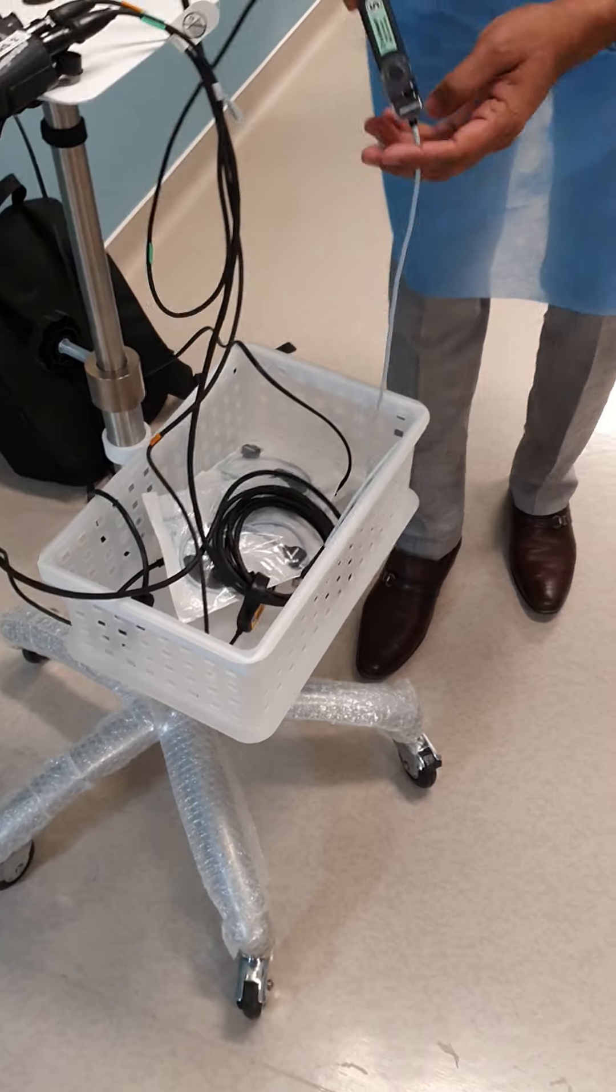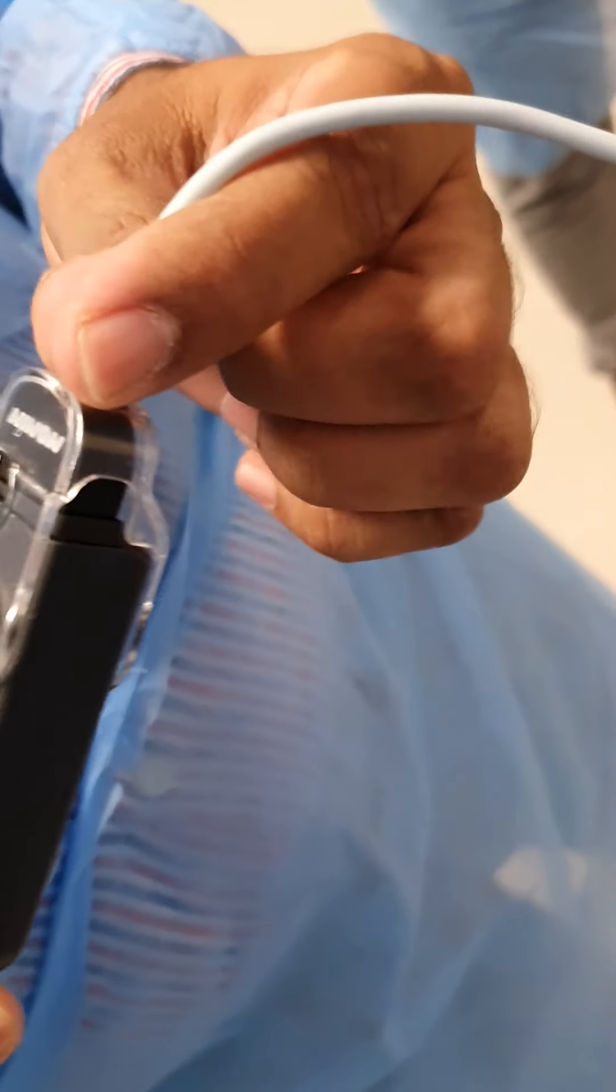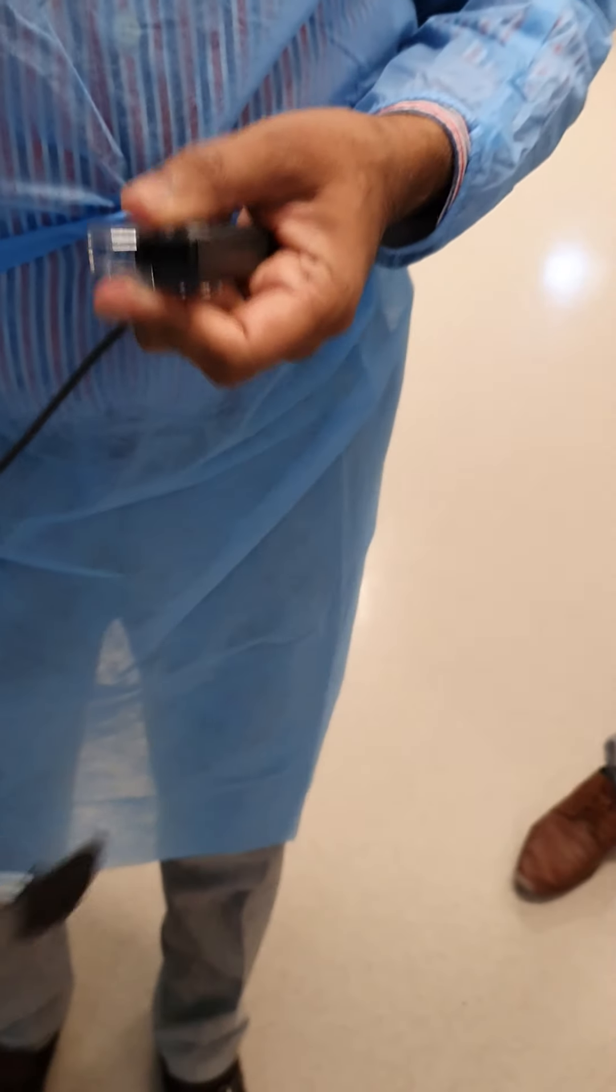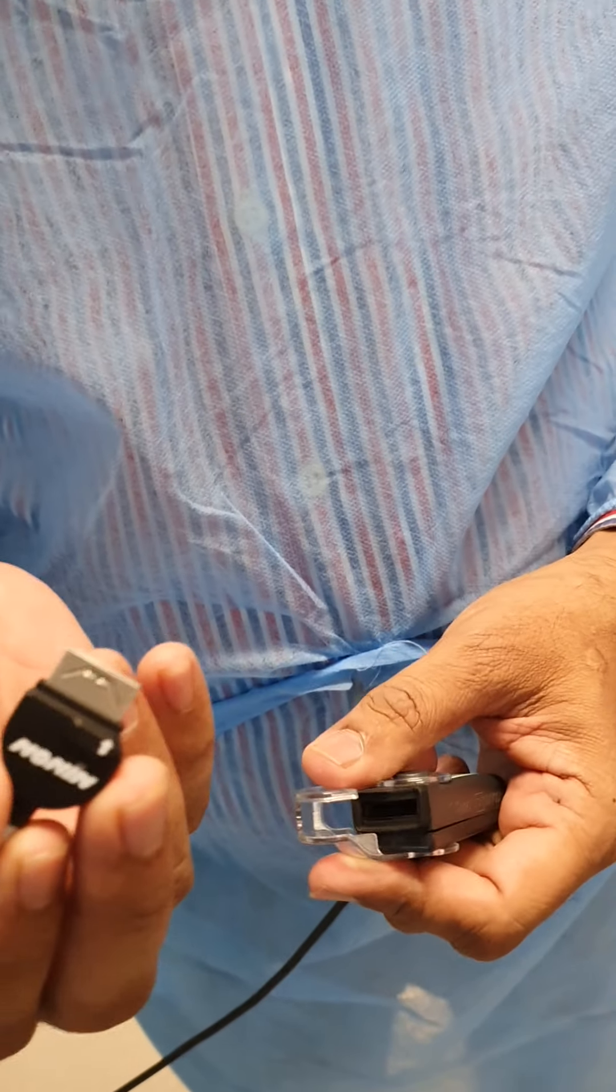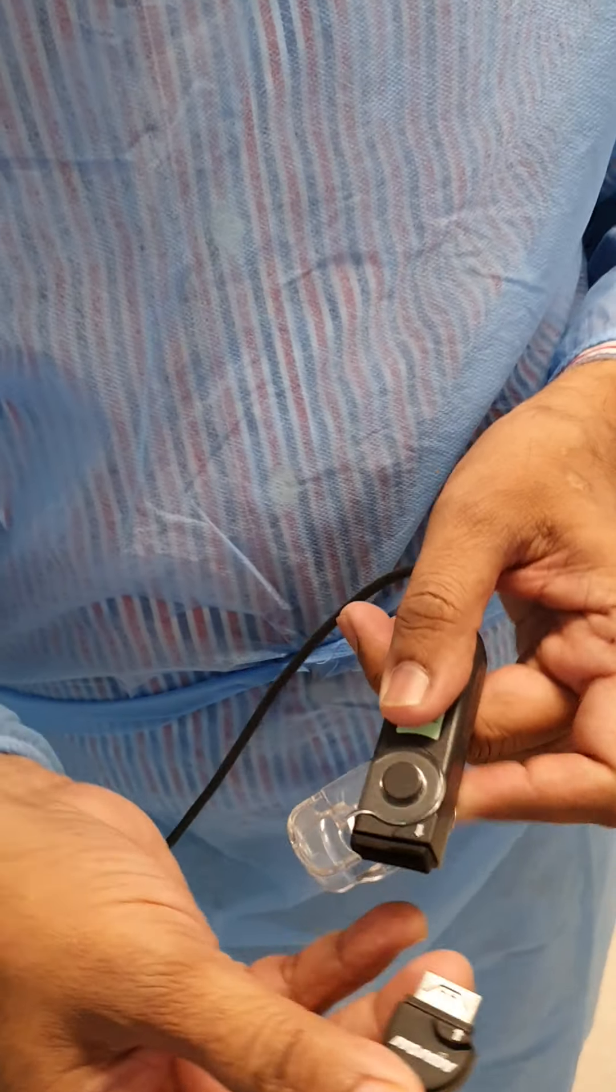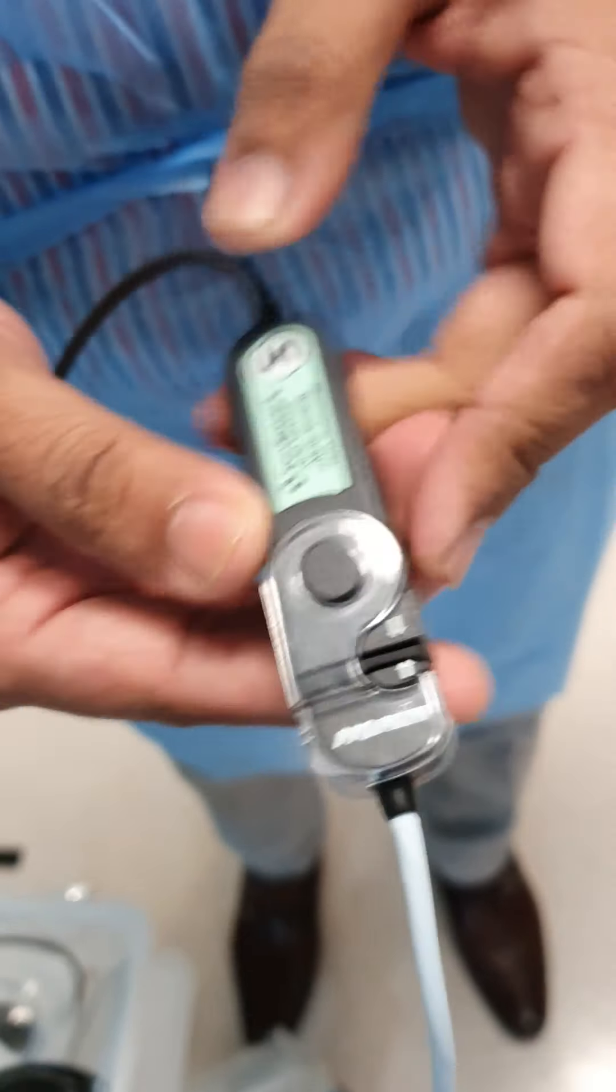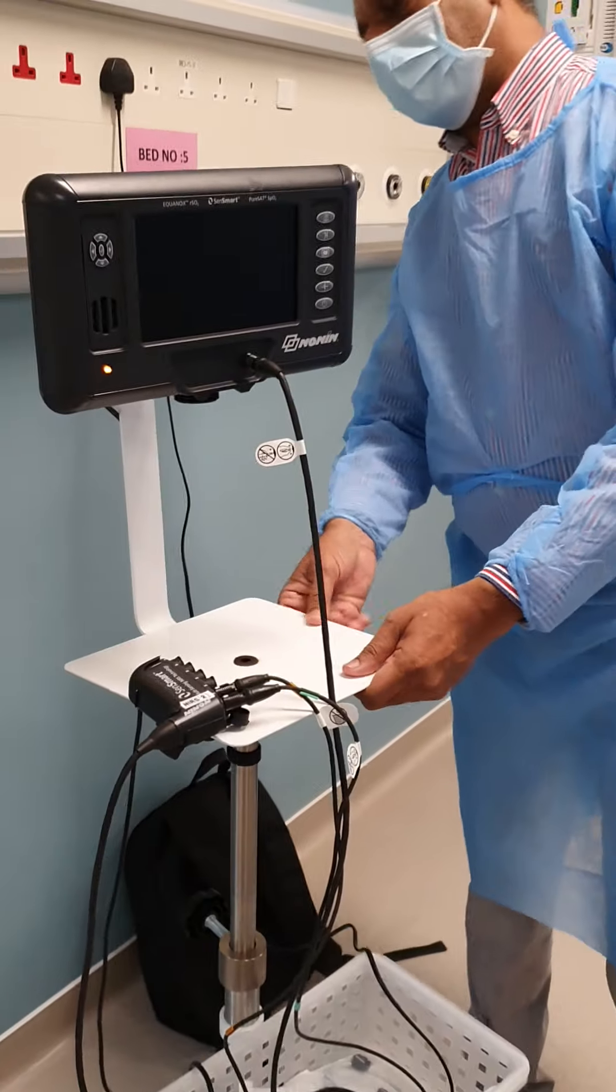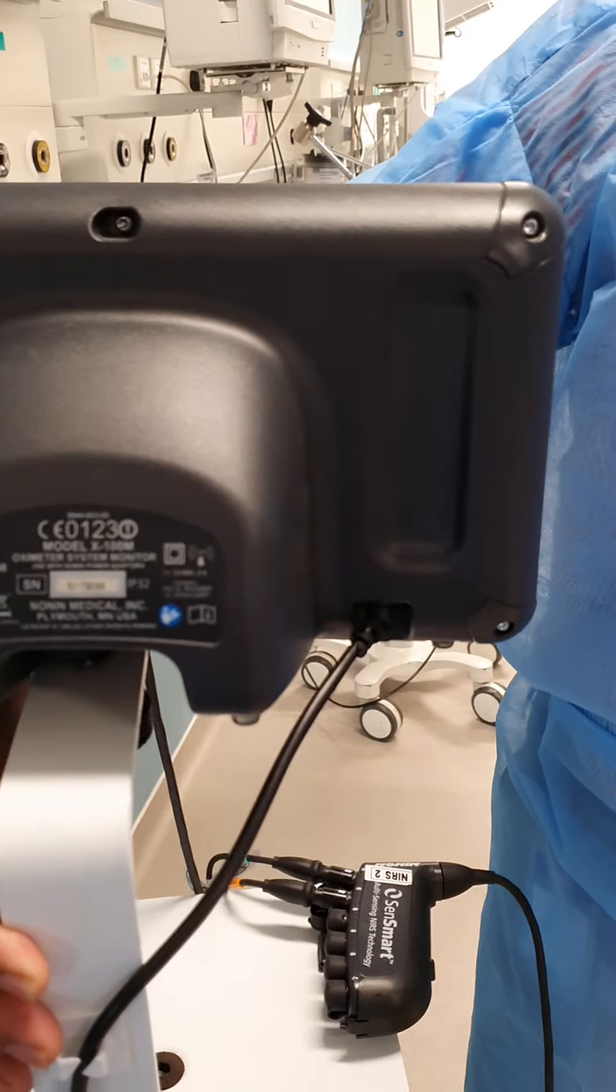If you move down, you'll see there's something called a signal processor. Ideally, this monitor what you are seeing is just a monitor. The main heart of the machine is this - the signal processor. The signal processor has connection for the sensors. This is a disposable sensor. We have two types: one is from 0 to 40 kg and 40 kg and above. You don't have to have multiple sensors depending on the age. Only one sensor is sufficient from 0 to 40 kg. Here also you can see marking to marking connection. The rear side has only the power connection. You just put the power on here.